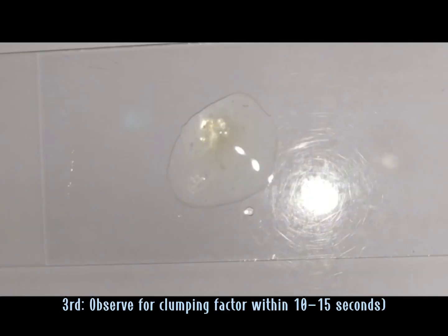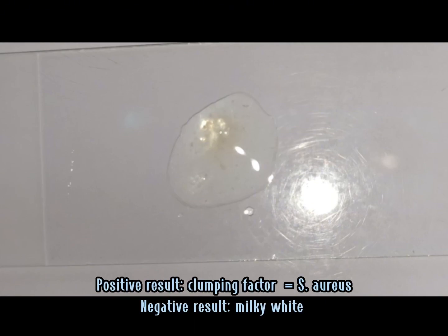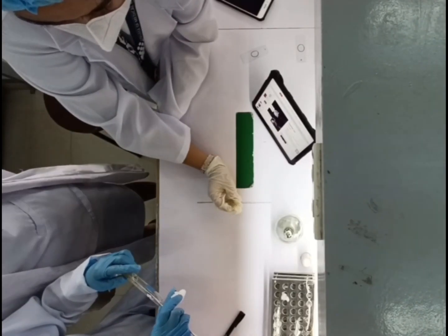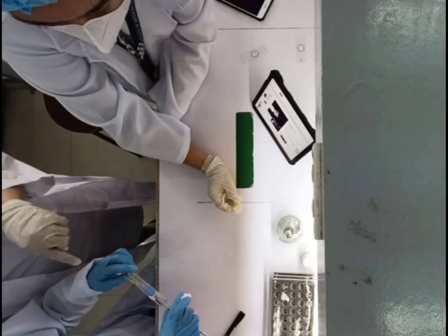Clumping factor indicates a positive result for the slide coagulase test. Therefore, it can be reported as Staphylococcus aureus. Since we can see a formation of clumping factor in our test, we conclude that this is Staphylococcus aureus. A negative result from the slide coagulase test should be further tested with the tube coagulase test.